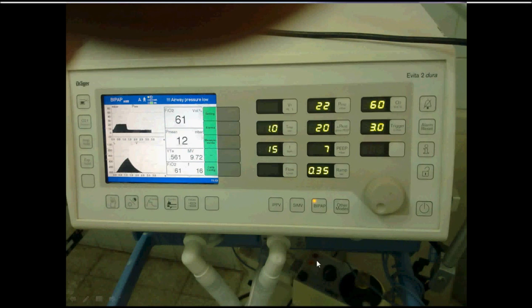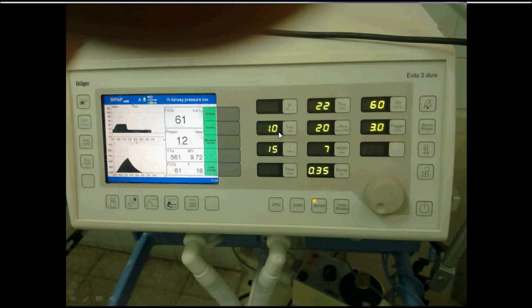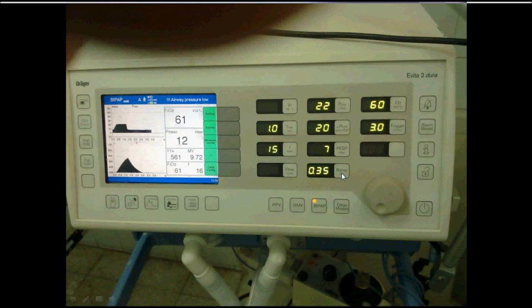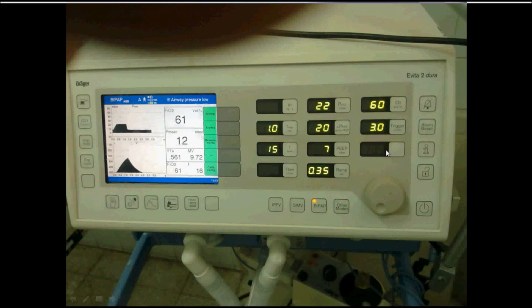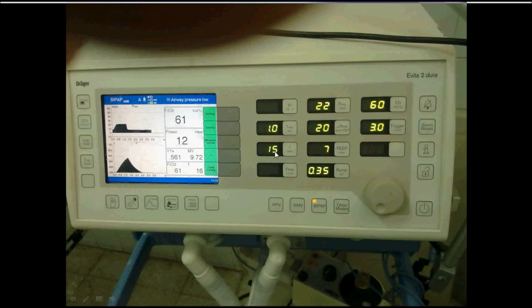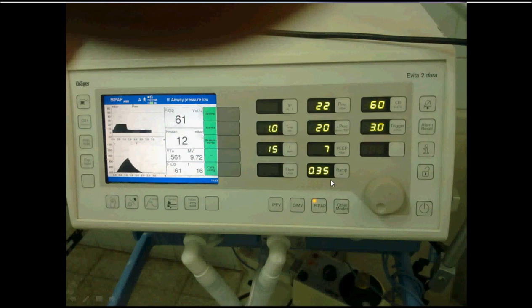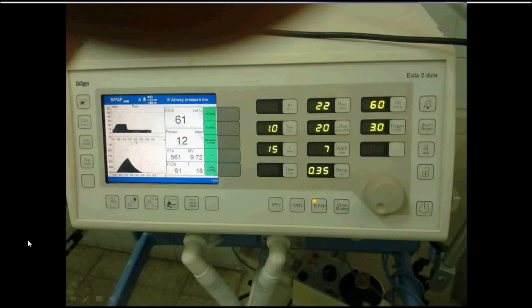Another machine shows: frequency of 15, inspiratory time set, high CPAP, pressure support, lower CPAP, and rising time. There is also expiratory sensitivity and flow trigger shown. The settings are straightforward: time for the high phase, the high CPAP value, the time for the low phase, respiratory rate, and pressure support if applied.